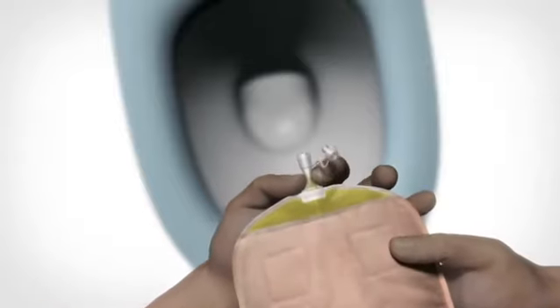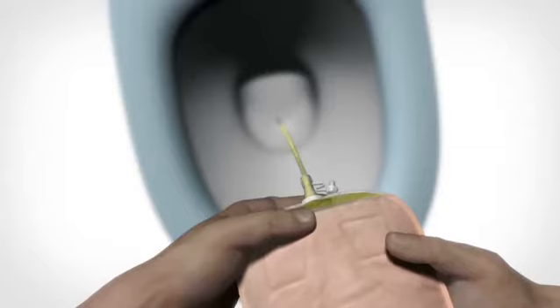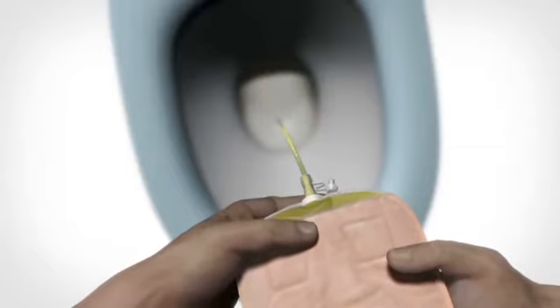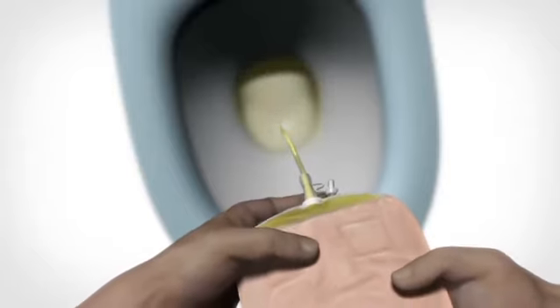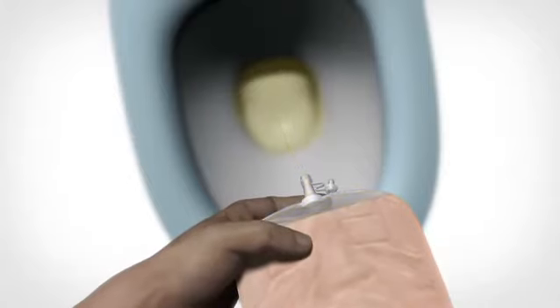When ready, point the outlet tube to the toilet. Loosen your grip to drain the bag but make sure to hold on to the outlet in order to control the emptying. Make sure the bag is emptied completely.